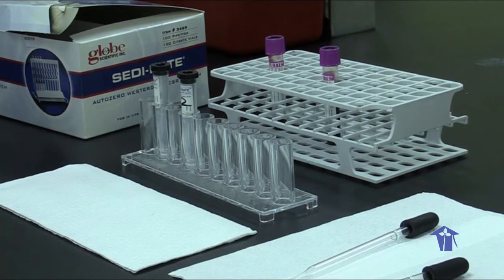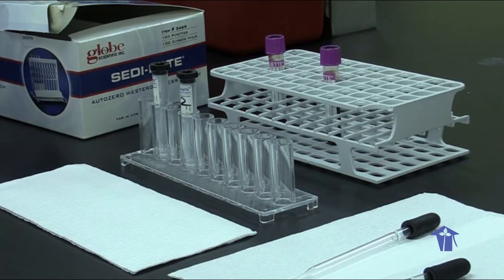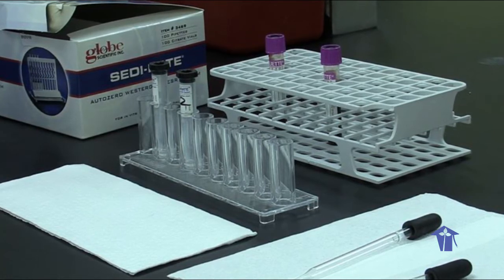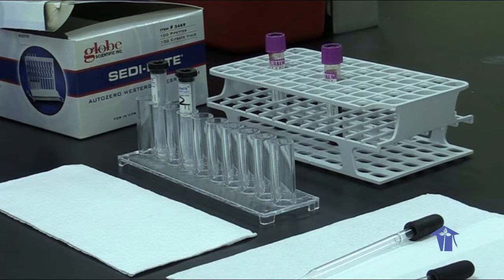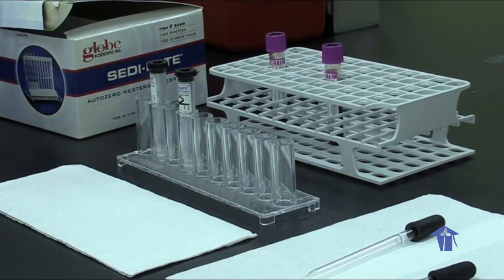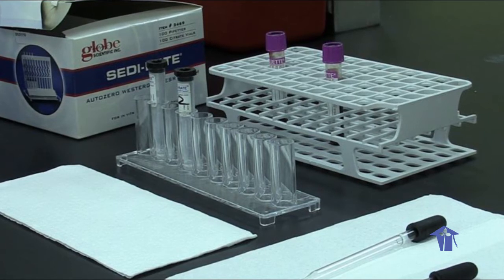In the case of increased plasma proteins, particularly things like immunoglobulins and fibrinogen, they tend to sediment out a lot more quickly, and therefore the column after sedimentation will be lower, and the time that it takes to reach sediment will be a lot quicker.